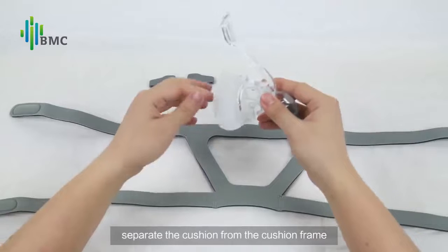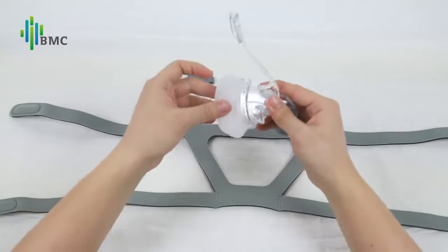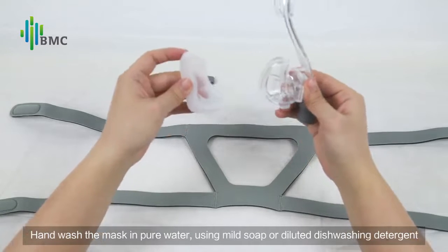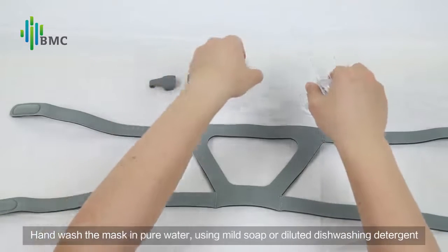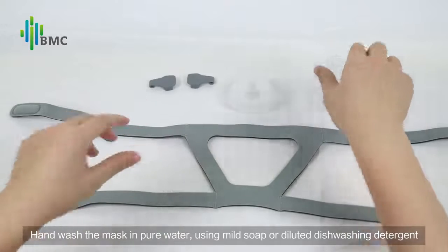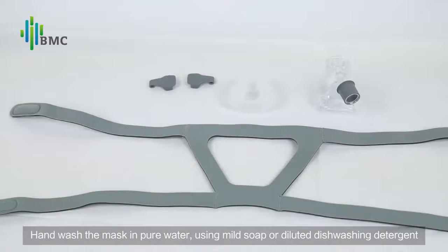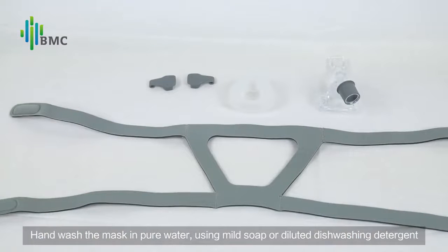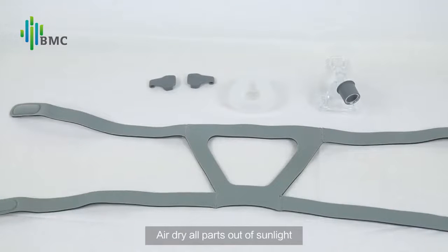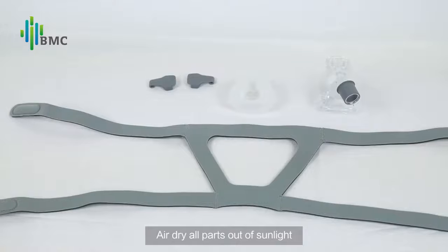Separate the cushion from the cushion frame. Hand wash the mask in pure water using mild soap or diluted dish washing detergent. Air dry all parts out of sunlight.